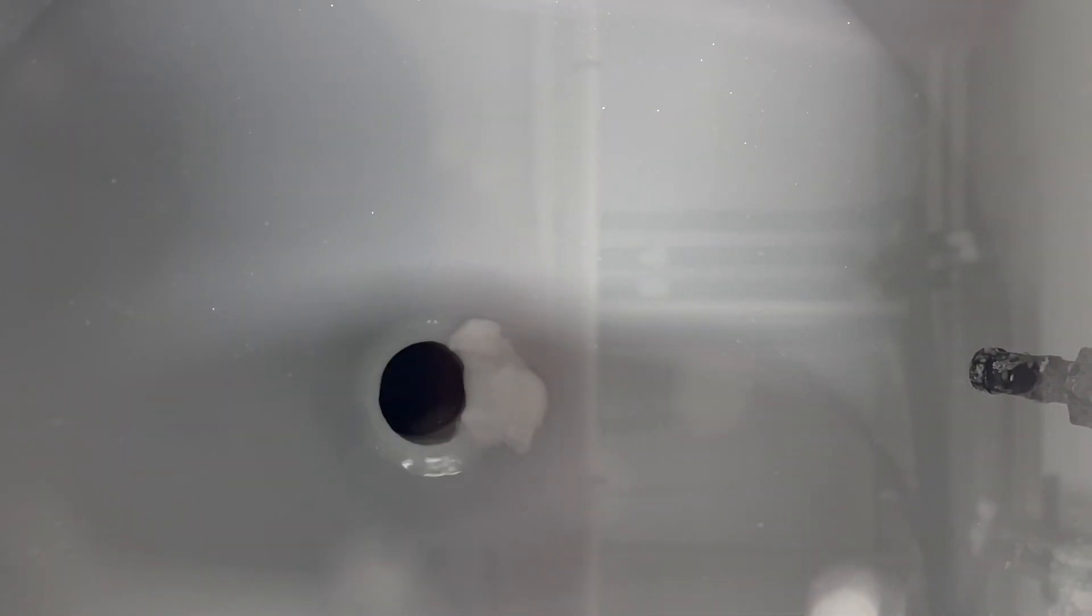If you notice dry acid left in the hopper, perform a manual rinse using the Repeat Hopper Rinse button until the hopper appears empty.